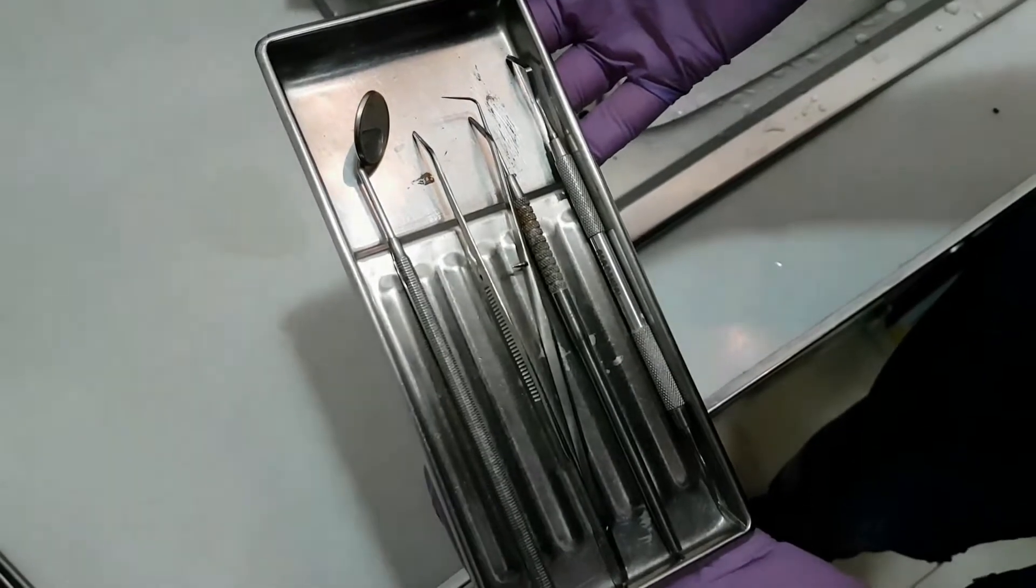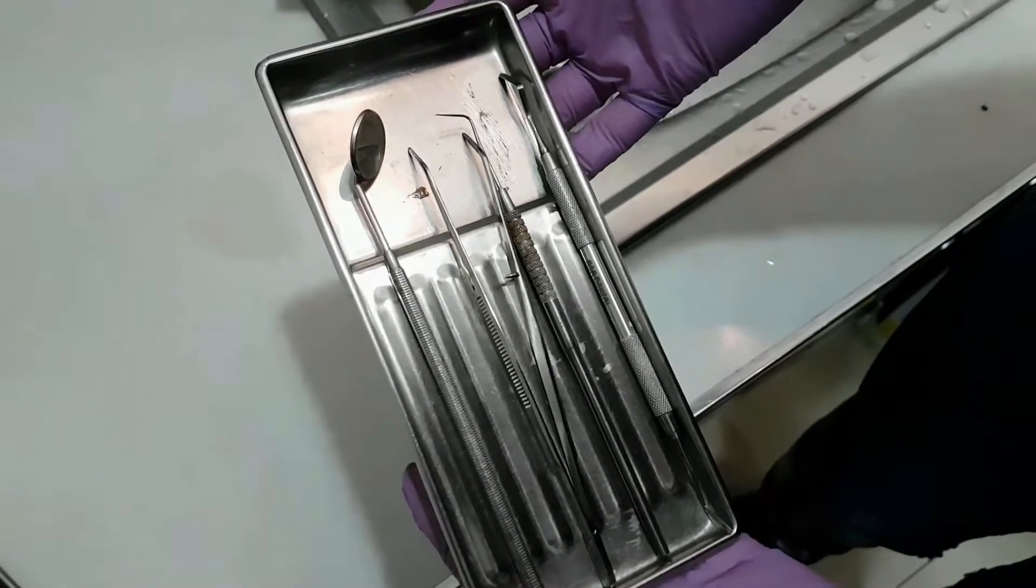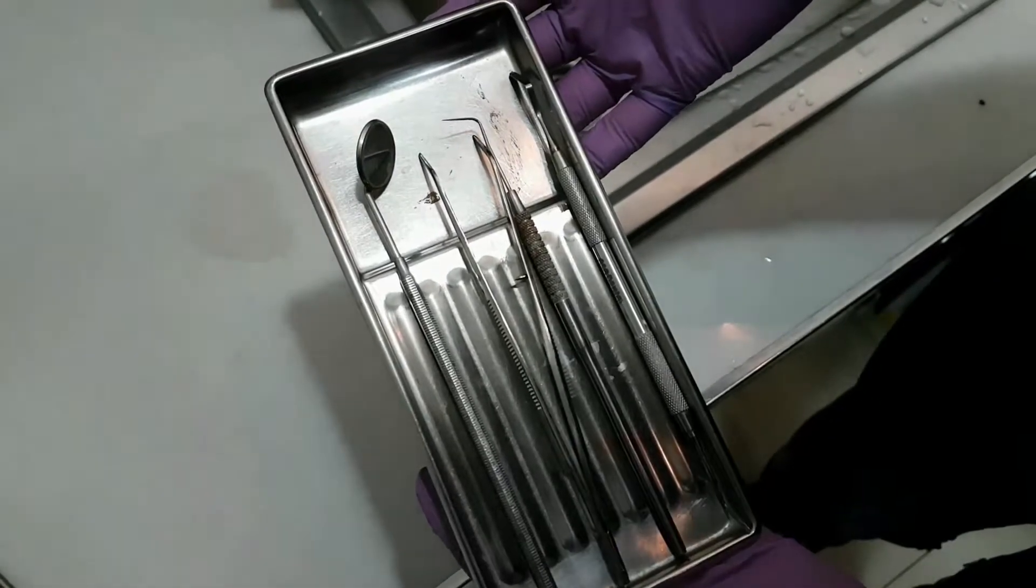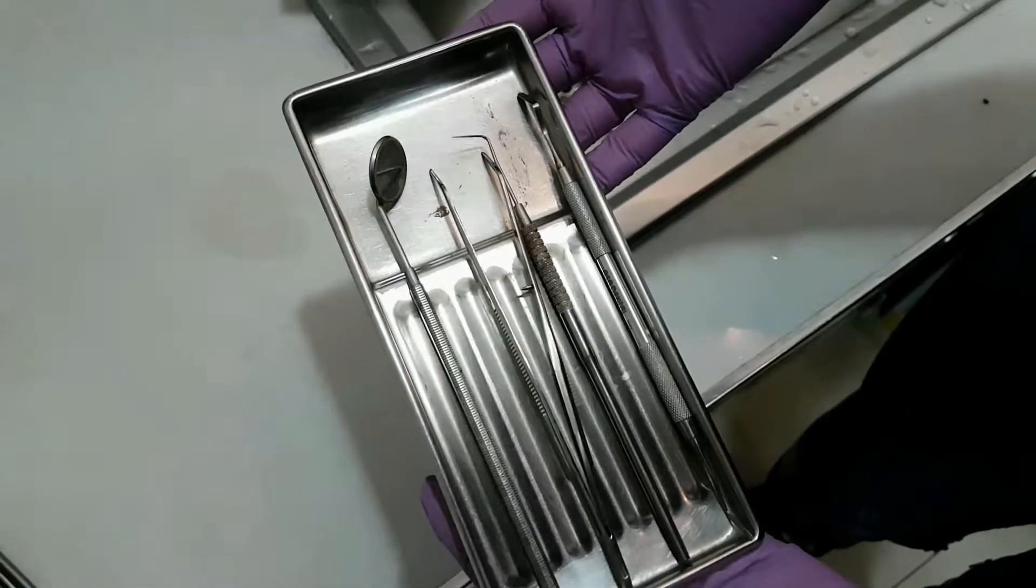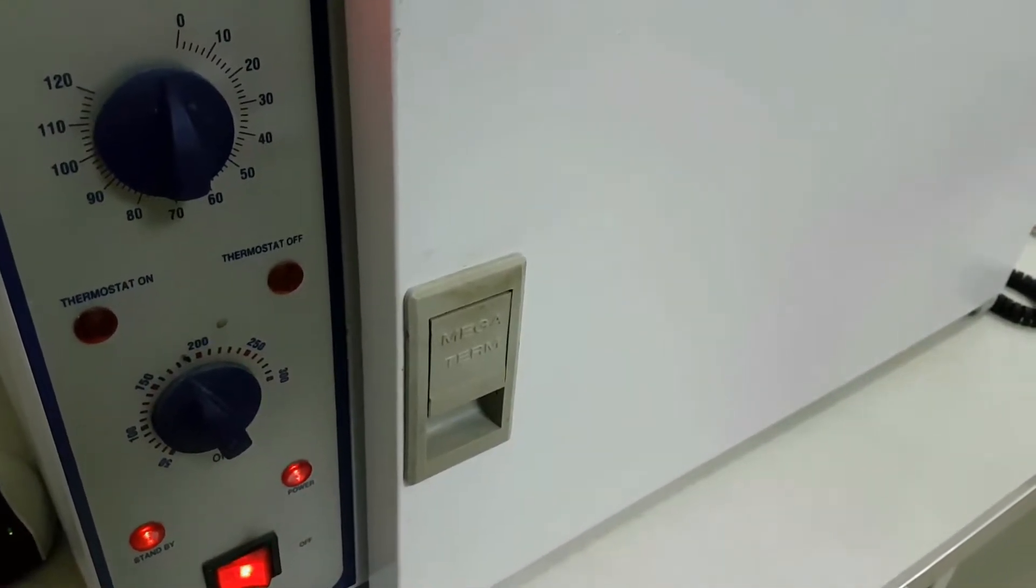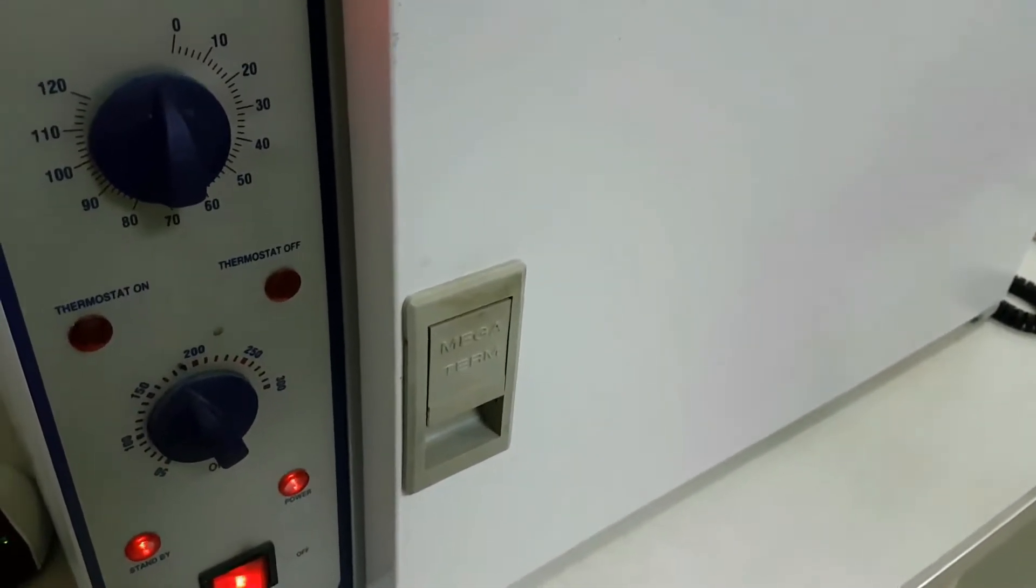This is how a dry kit of dental instruments looks like. Remember to dry them out before you put them in the machine for sterilization.